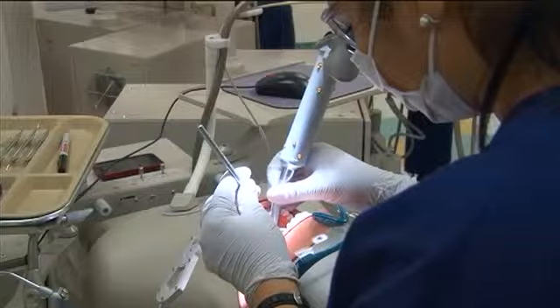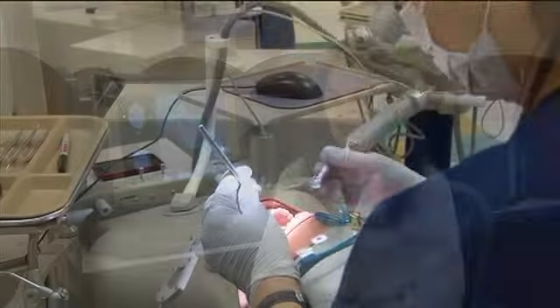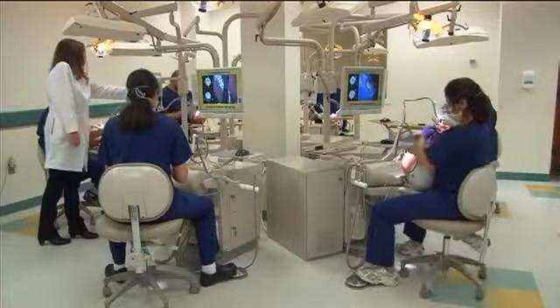We use DentSim mainly to train the students when they start a new procedure. They're used in the operative course and the fixed prosthodontic course. We also have plans to introduce a pedodontic arch and models, and also in the endodontic course.